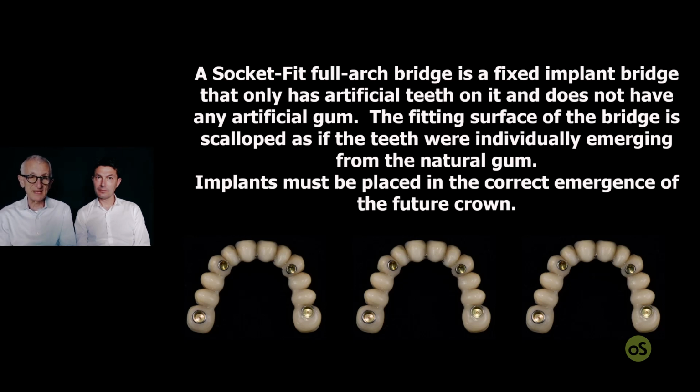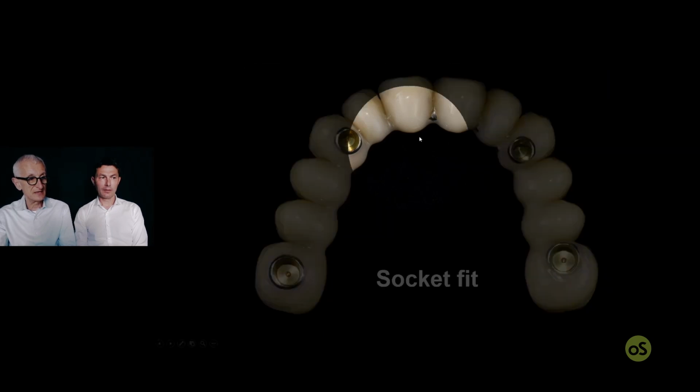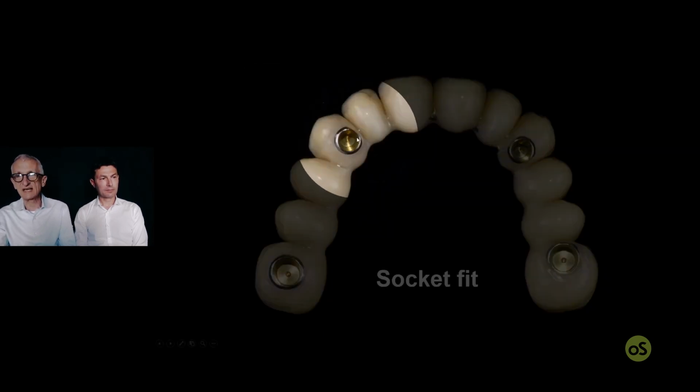Implants must be placed in the correct emergence of the future crown. So, with socket fit, we have to put the implant in the right position. Okay. Axis we can discuss, as with conometric it is less important, but the implant cannot be placed in between.